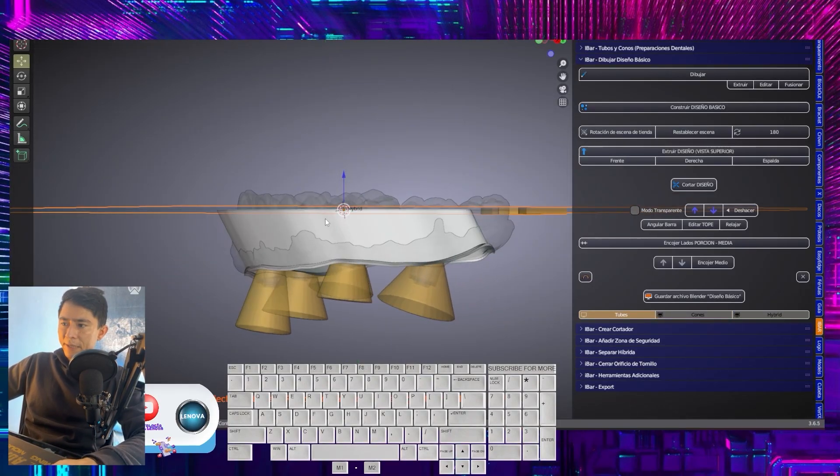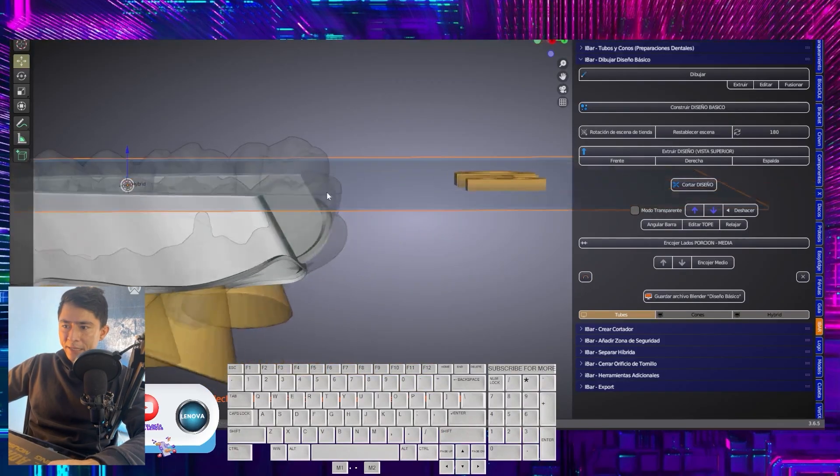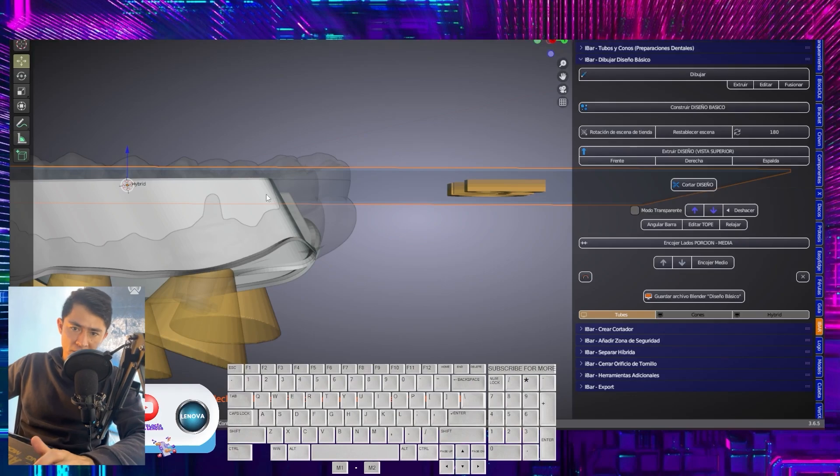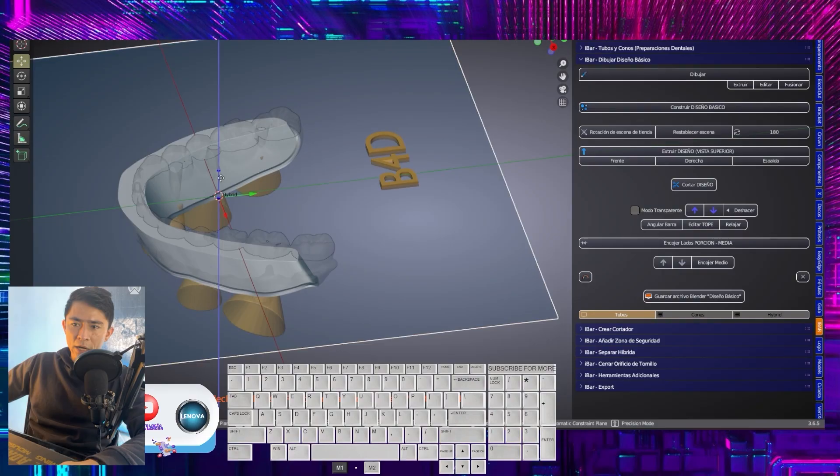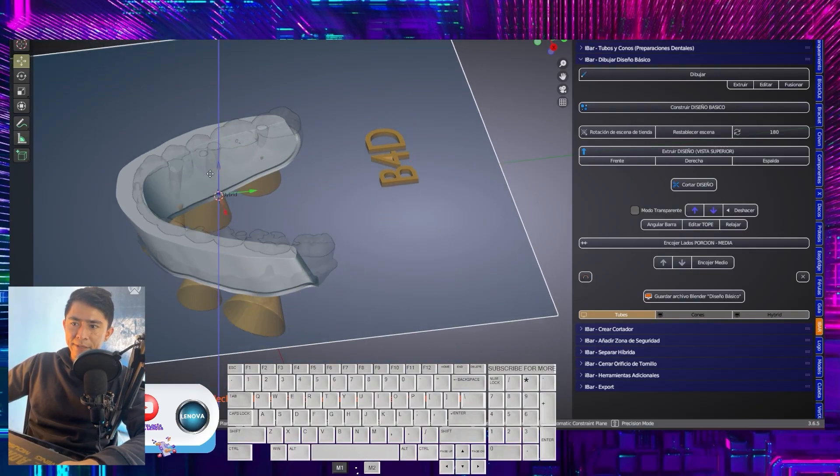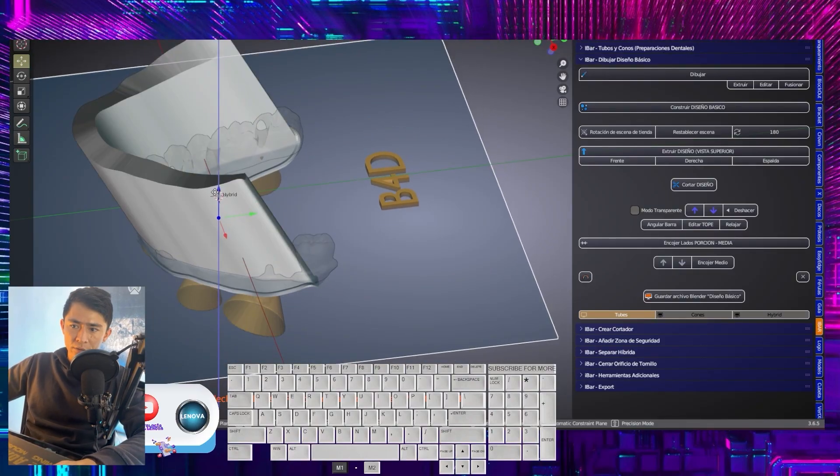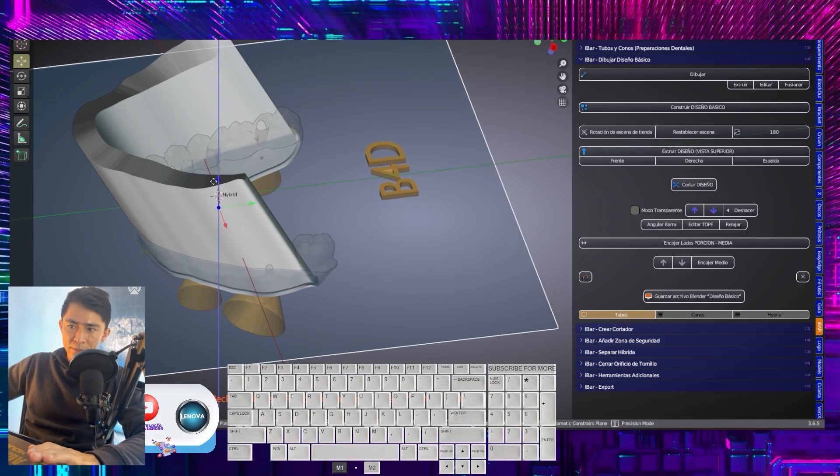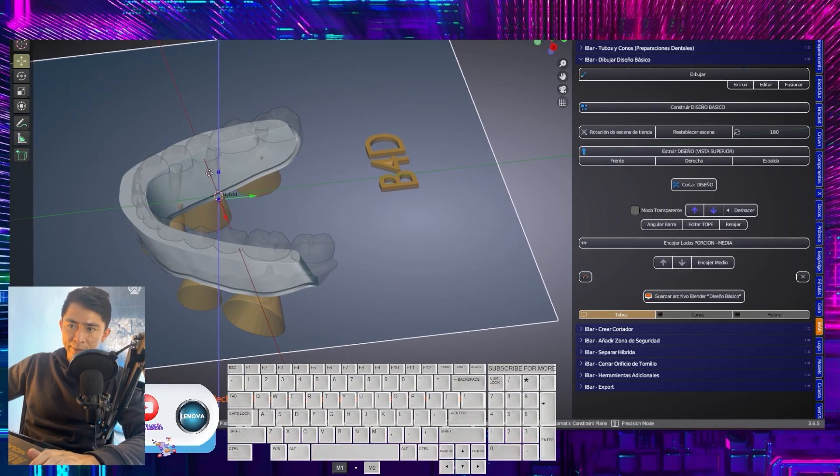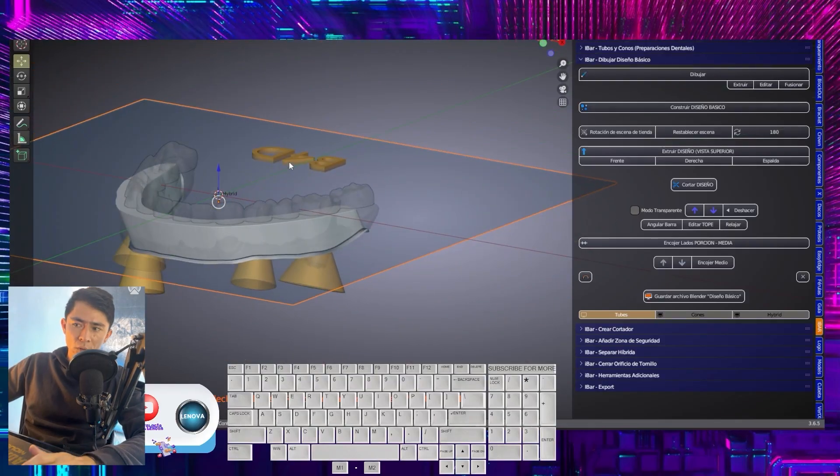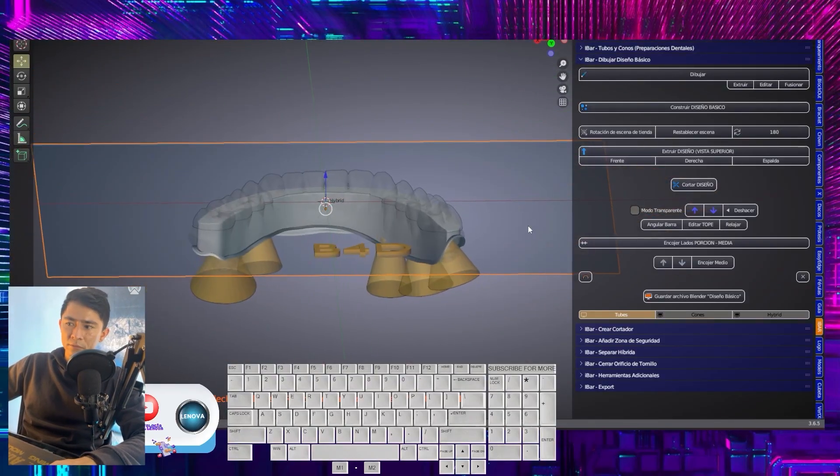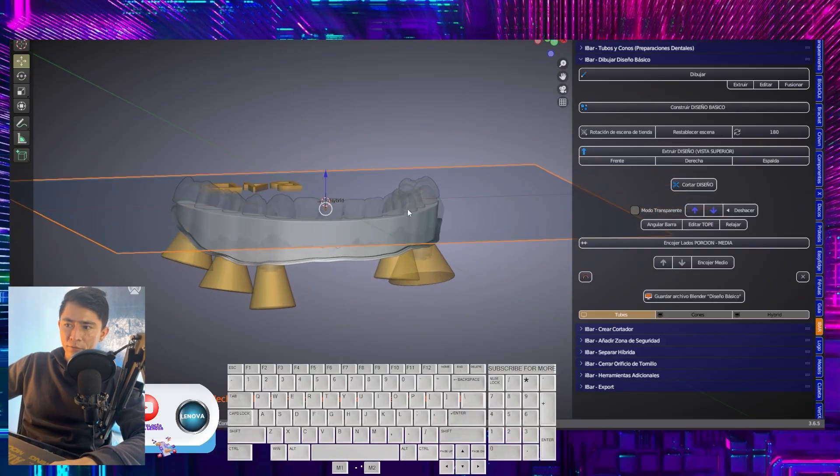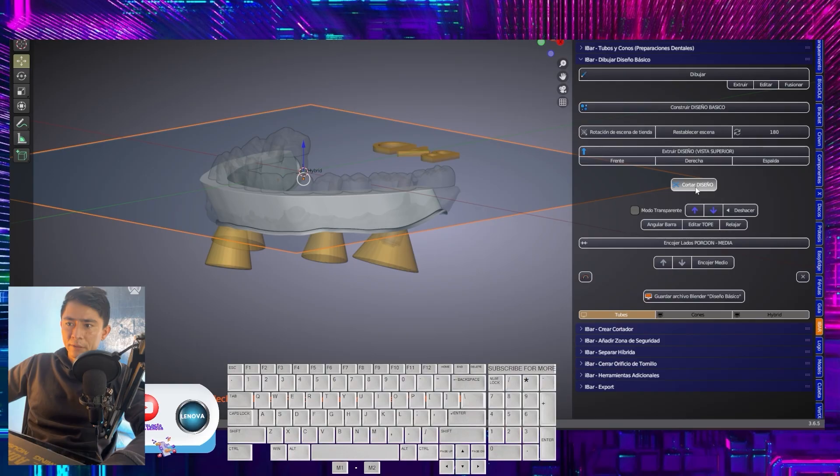What's the purpose of that? To create this angle so that this flank does not come out straight, but rather at an angle of about 45 degrees. Now, here we will move the blue arrow down or up. If you encounter this error, that is an error, grab the arrow, do not release the left click there, and instead start evaluating where it fits best. This is the ideal position or orientation axis. Once I determine the position, I indicate to cut.